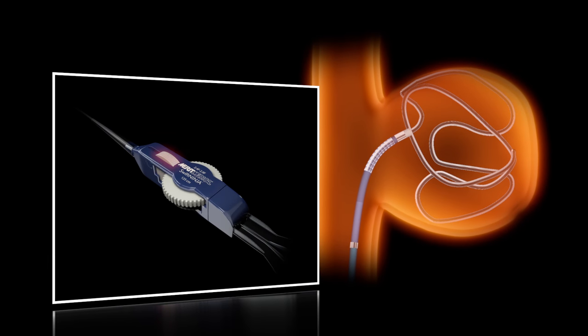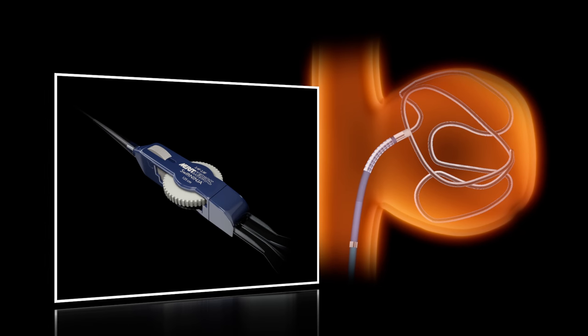During the procedure, the tip may be unlocked, repositioned and locked again to help achieve better results.